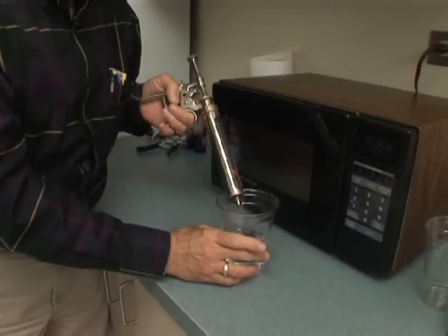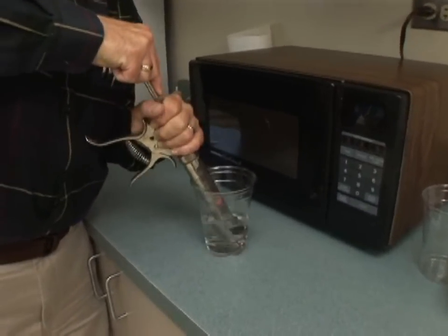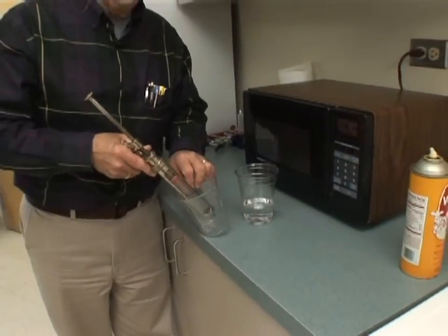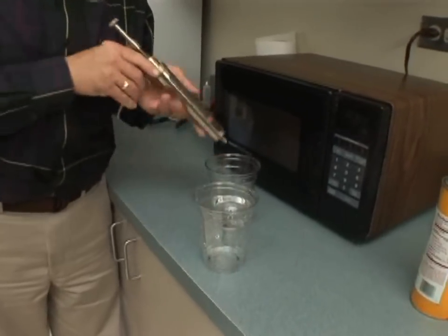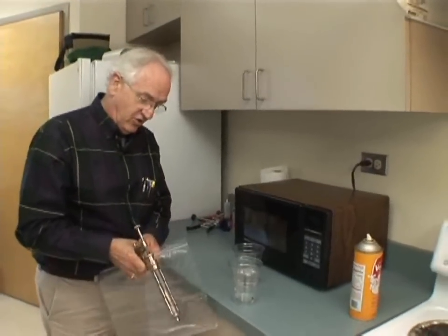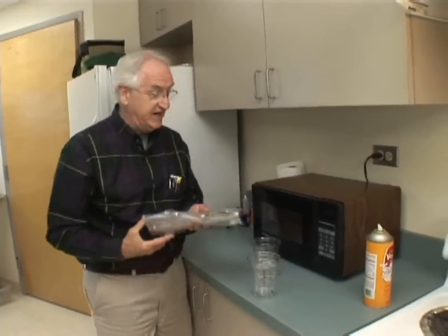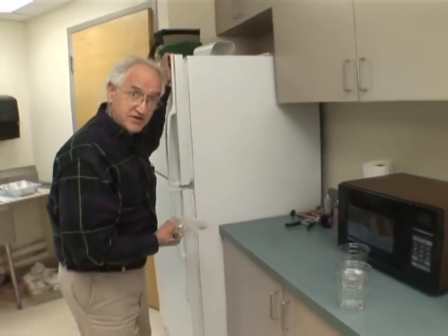Then with boiling water, suck the boiling water back up into the barrel of that syringe and expel it numerous times — three times is usually enough. After you've got all the water out of the system, store it in a clean plastic bag and put it in a dust-free cupboard or an ice box that you're not using.